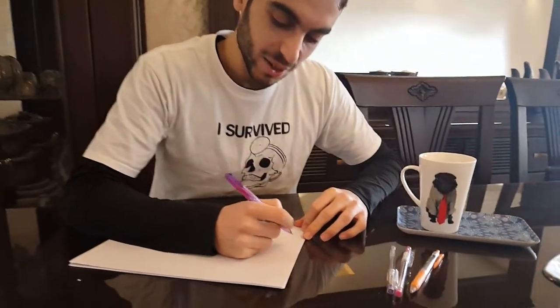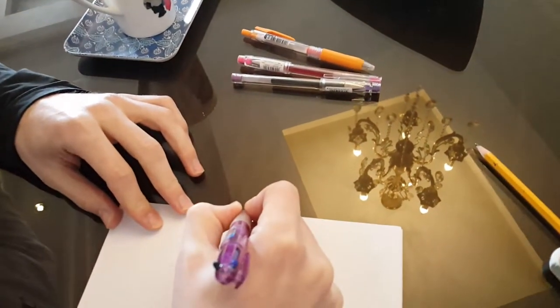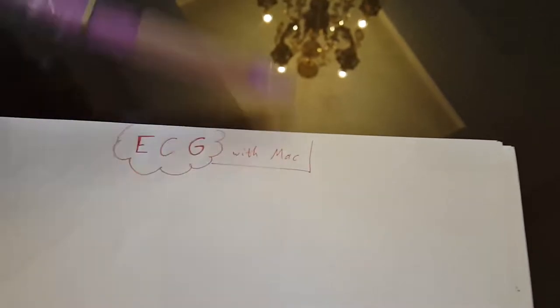Welcome to another video. Today I'm going to be explaining the basics of ECG — this is a retrospective, since in the first video I explained some more advanced stuff like tachycardias. But a friend asked me to do some basics, so here we are. We're going to cover ECG in very general terms: how to start analyzing, what's normal for every wave, and what differences there can be.